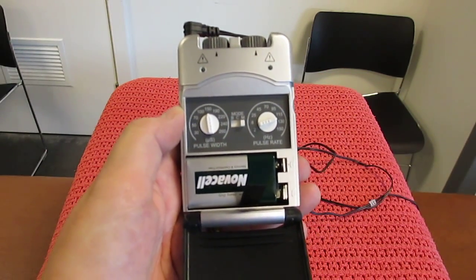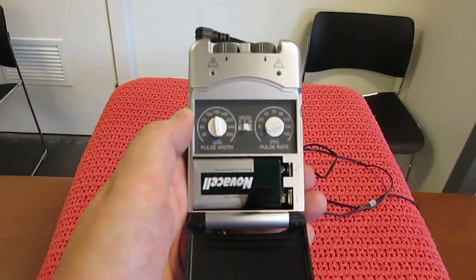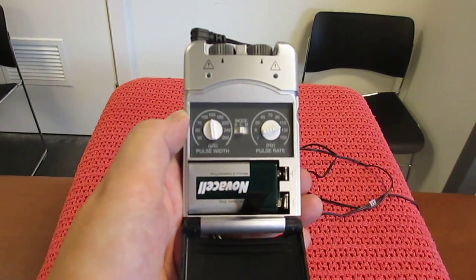We then select the mode. We're going to do continuous, which is in the middle, so press that button to the middle - C for continuous.